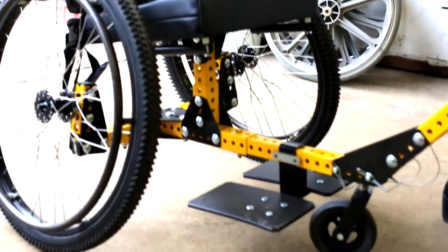It's really comfortable. Just adjust the height — for kind of the lumbar. It's flexible. Because my back tends to hurt, so this is really comfortable.